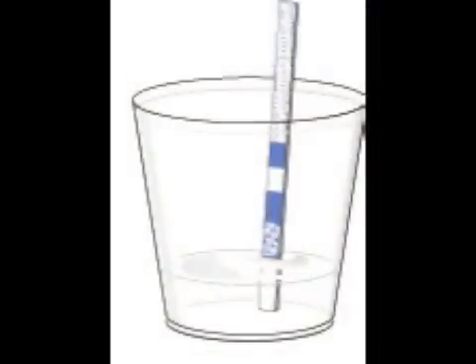It is simply a case of collecting some urine and testing with a dip strip. Within minutes you will know if you are about to ovulate or not.